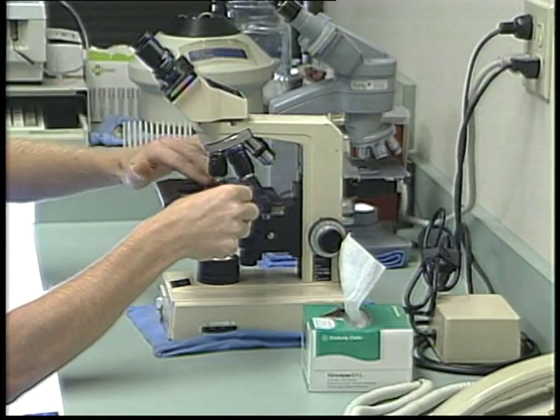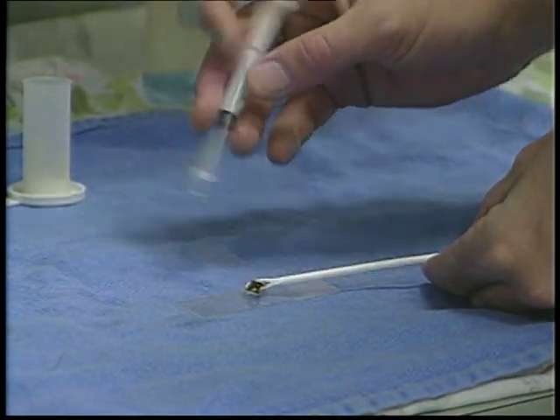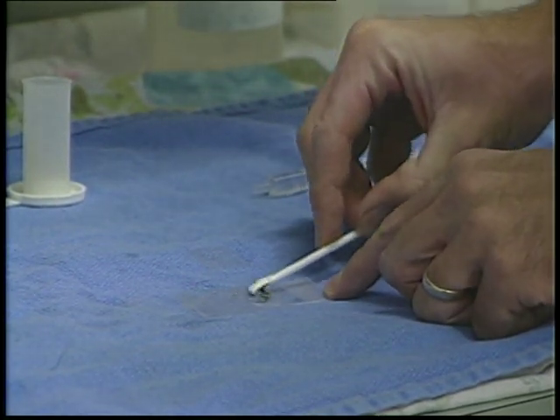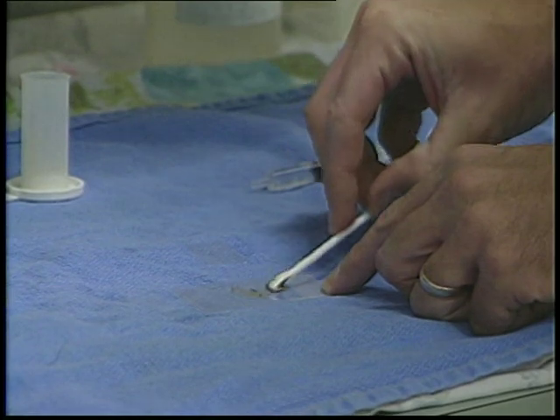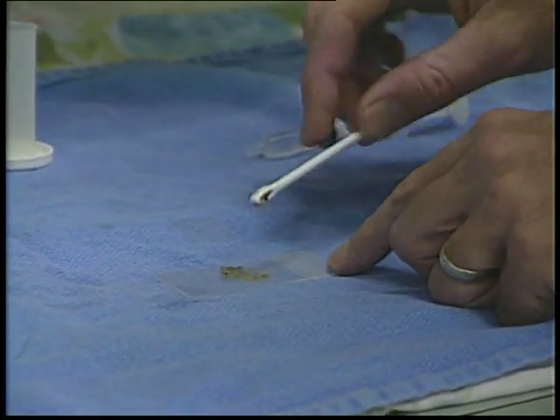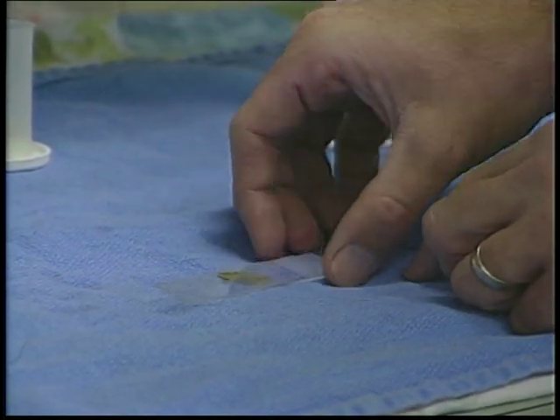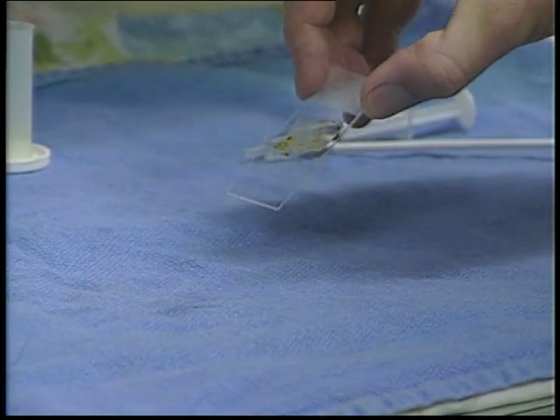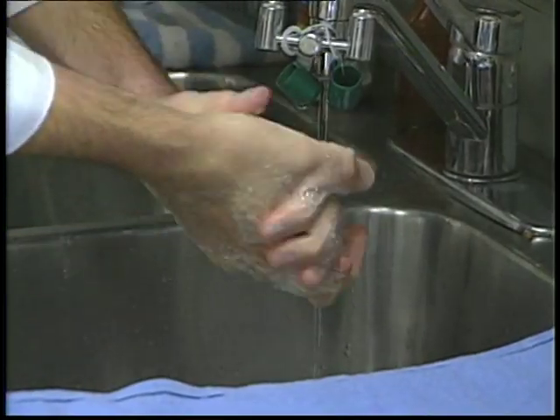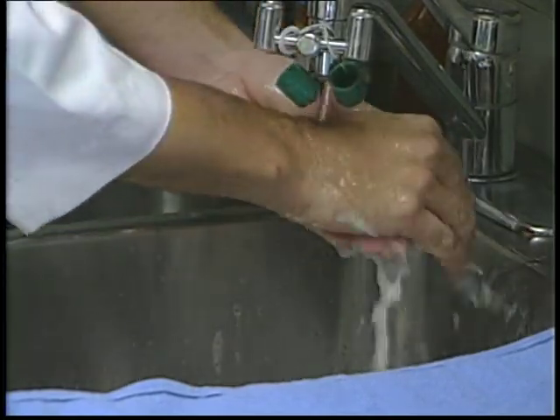The other technique used for detecting intestinal parasites is a direct smear. With this technique, a small amount of feces is spread onto a glass slide. A drop or two of saline is added and stirred lightly. Place a cover slip over this mixture and examine with the microscope as before. This technique is especially helpful in diagnosing certain protozoa like Giardia. Always follow good hygienic practices and thoroughly wash your hands after touching containers with feces in them.